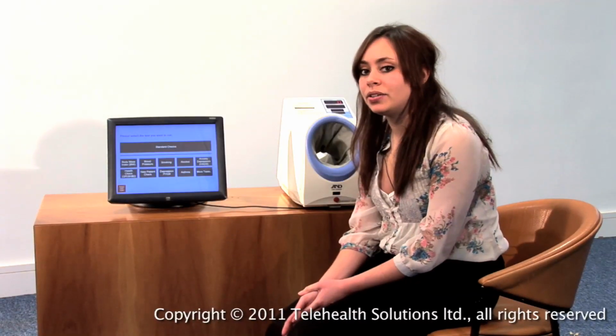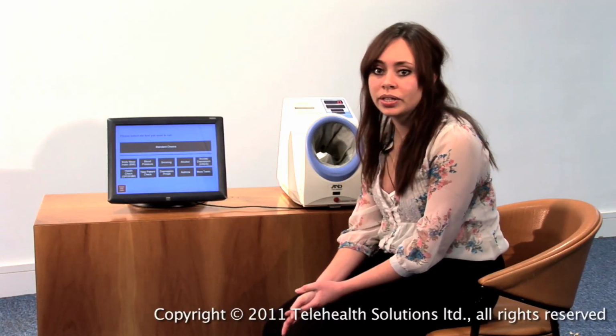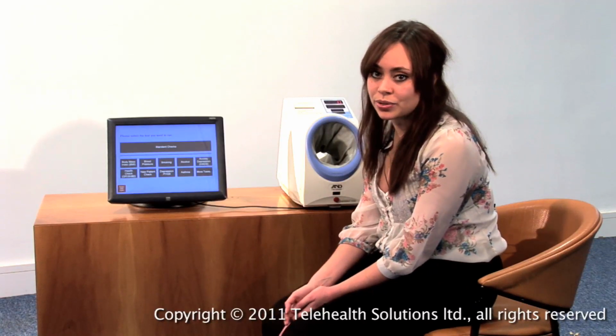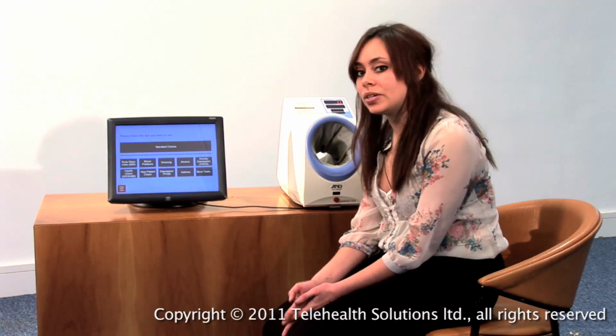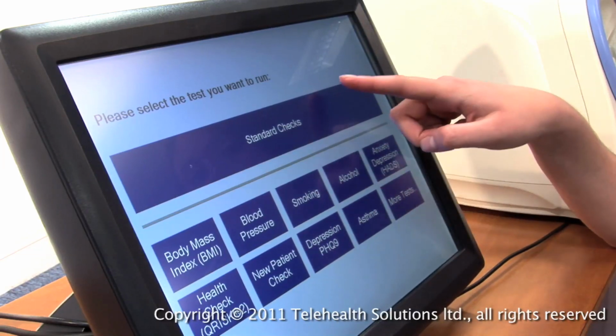As you can see here, you've got the range of tests that you can have, from BMI and blood pressure and your cardiovascular risk questionnaire across to the clinical questionnaires such as Audit C. But what I'm going to do here is go through the standard checks, which is a range of the tests that you can get below.